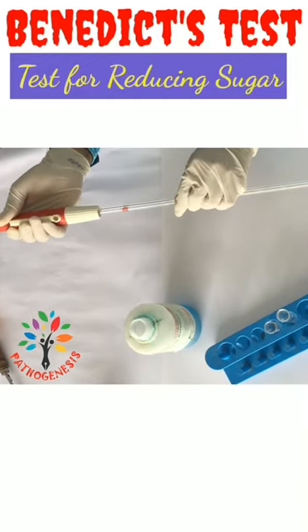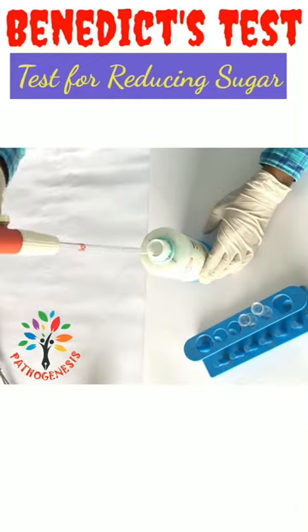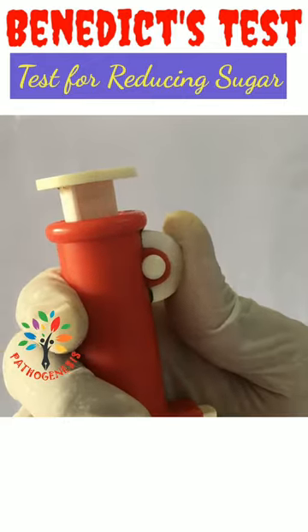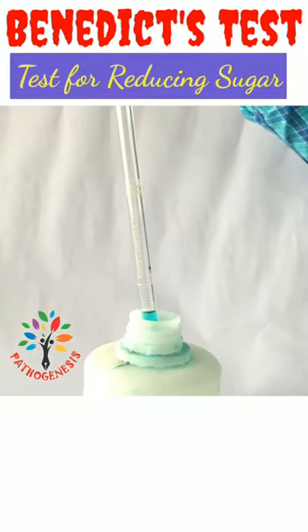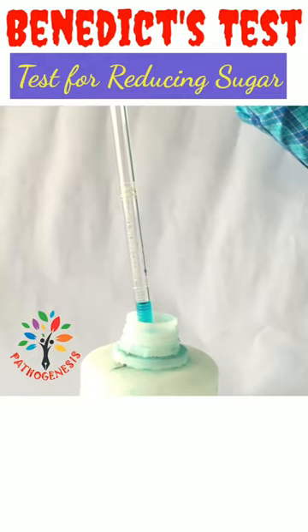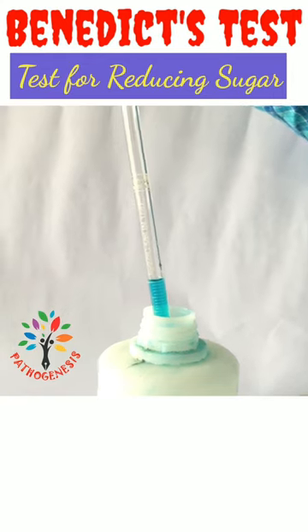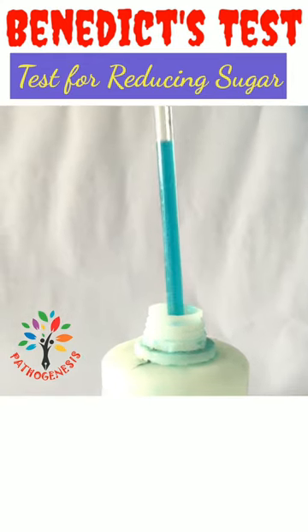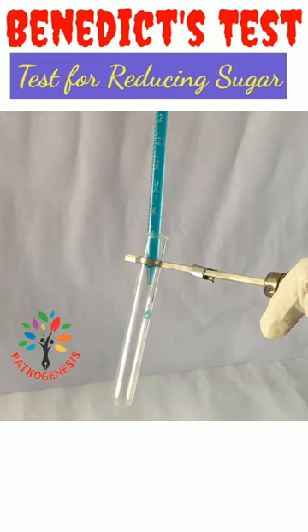Benedict's test is basically used in clinical pathology laboratory to check whether reducing sugar is present in a urine sample or not. Glucose is one of the reducing sugars which is present in the urine of a person with diabetes mellitus.